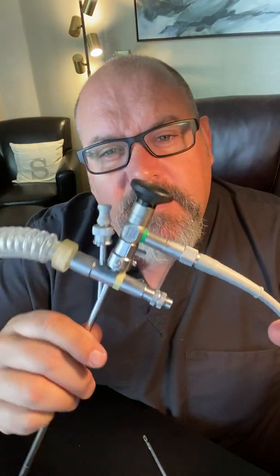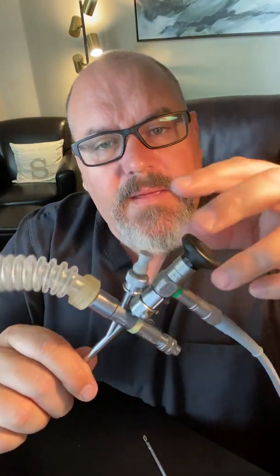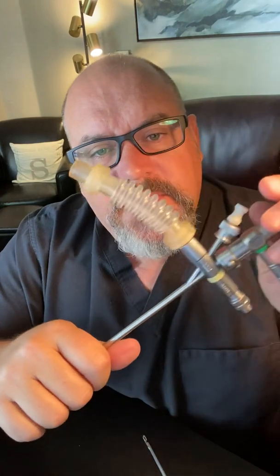The patient is brought in, put down, and the head is suspended. The surgeon will then take the rigid bronchoscopy tube that's completely loaded up, put the camera on, and insert it into the patient with the head suspended. Look for the foreign body — in either the esophagus if this is an esophagoscopy tube, but for this sake it's bronchoscopy. Locate and identify the foreign body.